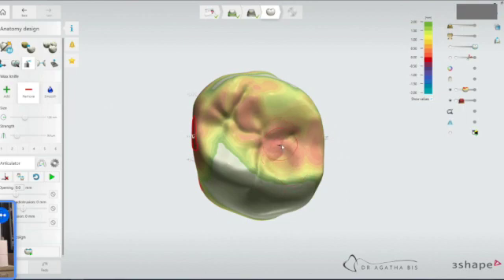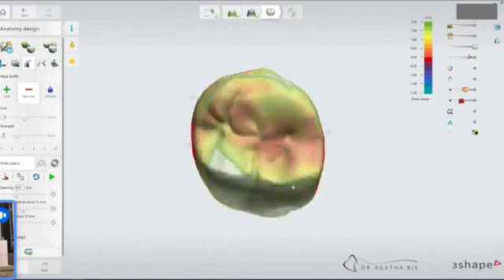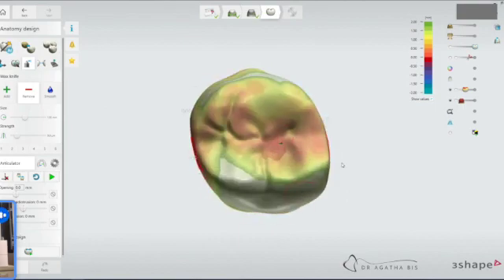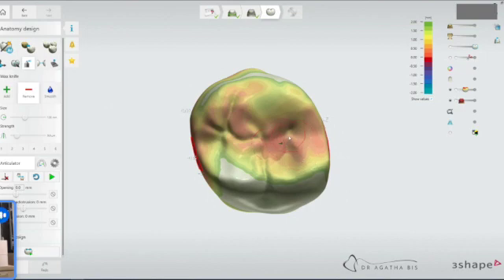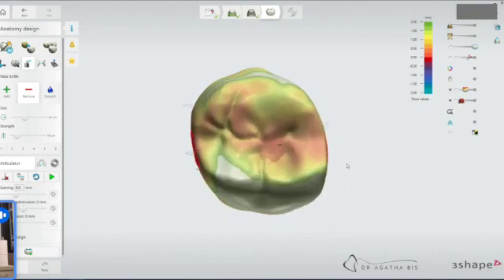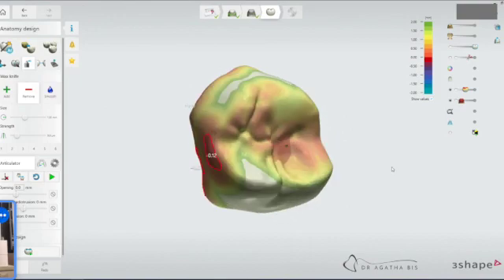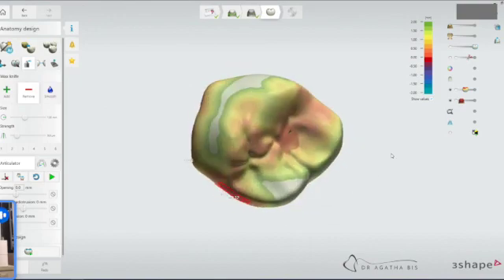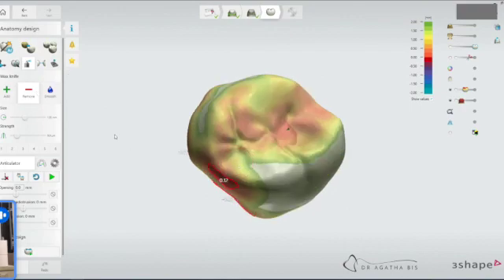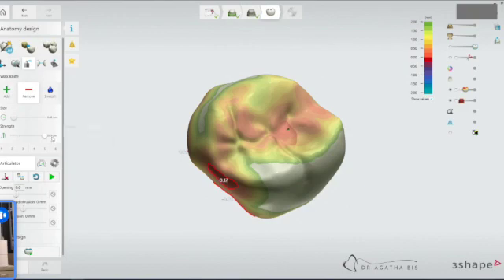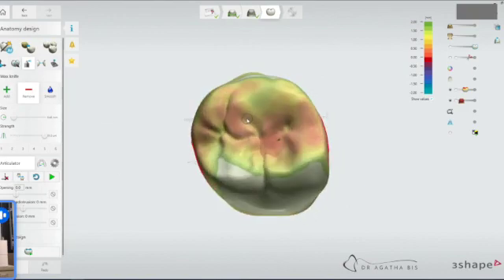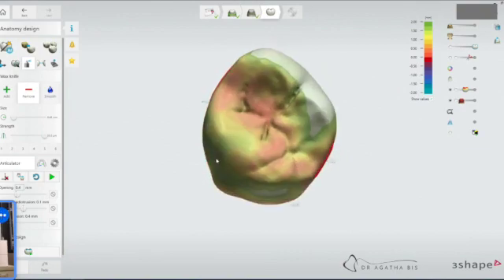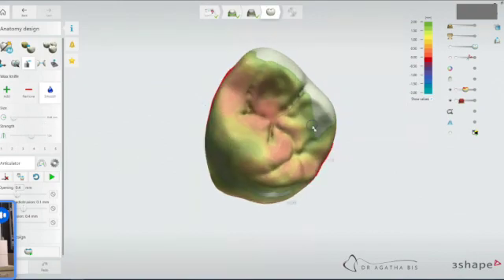So then you have a choice to make. Do you want to keep going and just have this area that's a little bit more compromised? Or do you want to deal with it in the mouth when you can run it through the chewing cycle? That's a personal choice. Sometimes I'll introduce more grooves. I find the system, depending on what it chooses, doesn't give me a lot of anatomy. So sometimes if I want more, I'll reduce the size almost down to the lowest and crank the strength all the way up. Then you can get some really beautiful grooves. It's your decision whether or not you want to do this. Then you could smooth it as well. I usually keep the size really tiny again and just get the smoothing tool so it's not so lumpy.